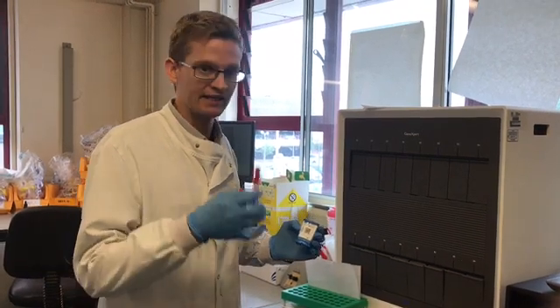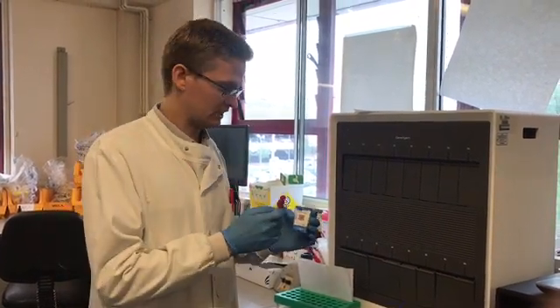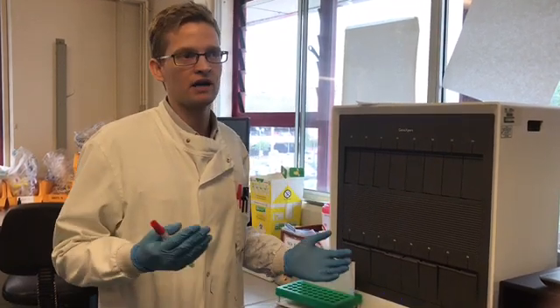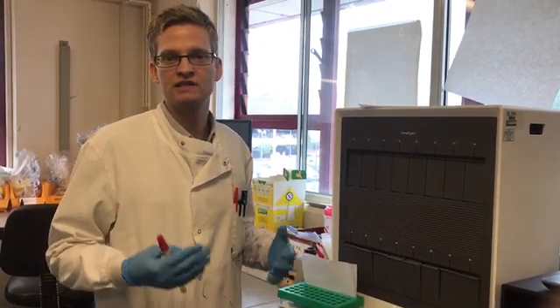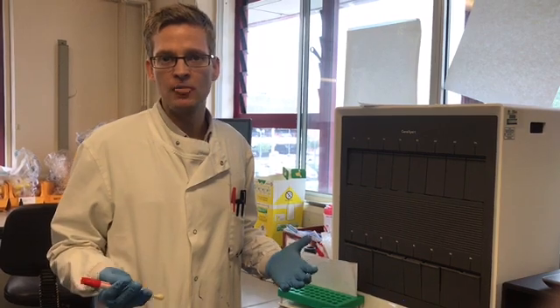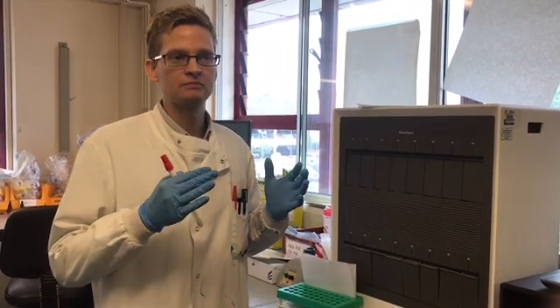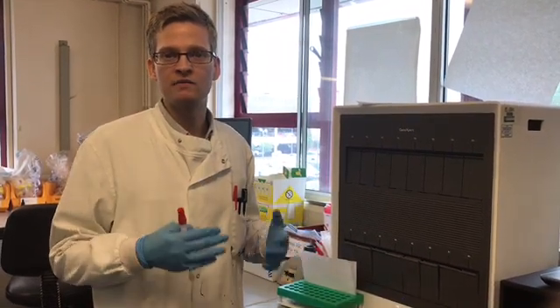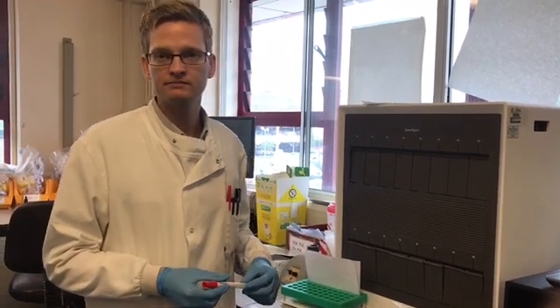The idea is that we can take a sample, put it onto this machine via this cartridge, and within an hour we have an answer to the question of whether that patient is carrying MRSA or not. From that we can then treat them or isolate them and ensure that they don't pass it on anywhere else.